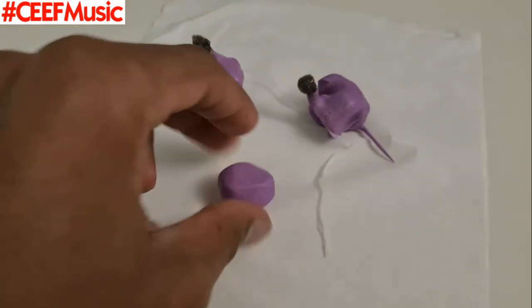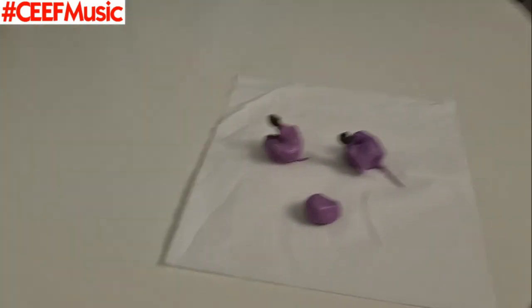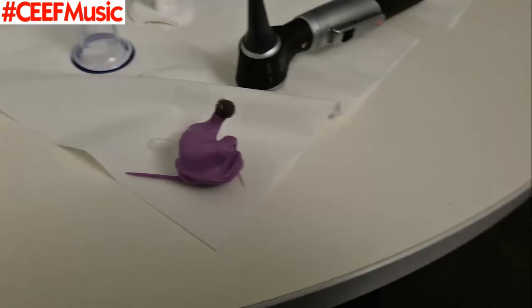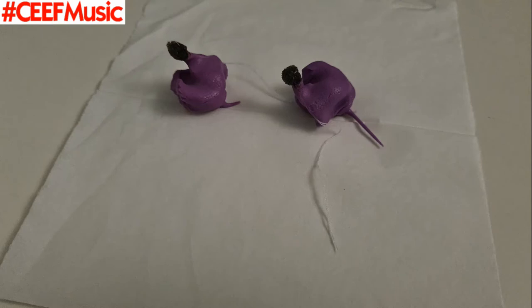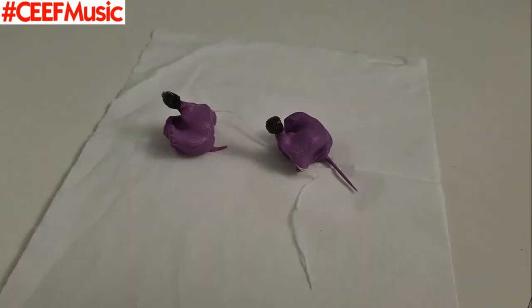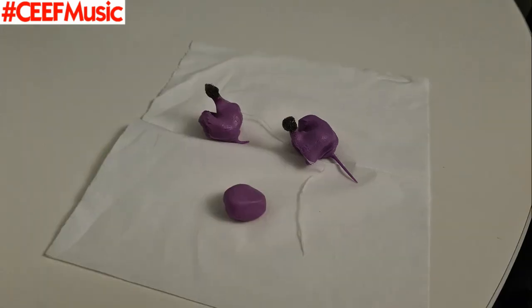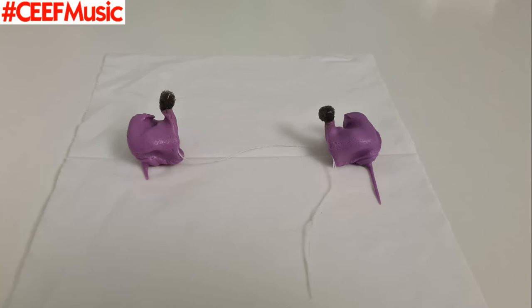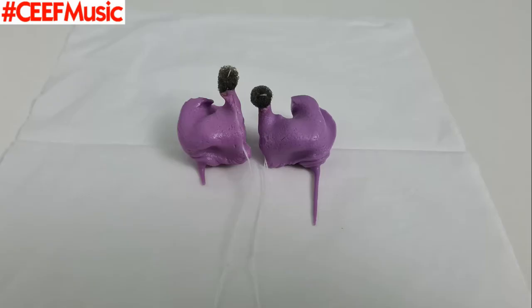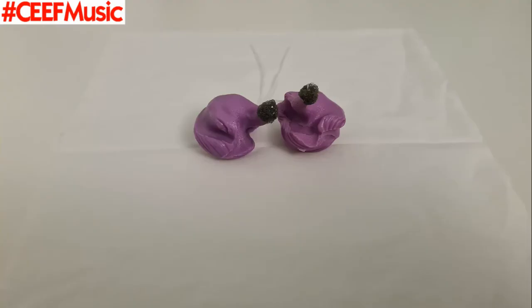Here's what my ears look like, the inside. I said, you know what, let me show you guys the shape that I made — I don't know what you could describe that shape. Left and right. And then a final goodbye sort of thank you from me. So I just decided to take some pictures for you guys in between, just trying to get some angles. If anyone's thinking about getting their impressions taken, trust me, go do it. Your ears matter — in 30 years' time you're going to thank yourself that your ears are where they should be in life. I've got some nice shots coming. Left and right should be obvious to see. And then I swiveled this round and took multiple angles. That's the final photo.